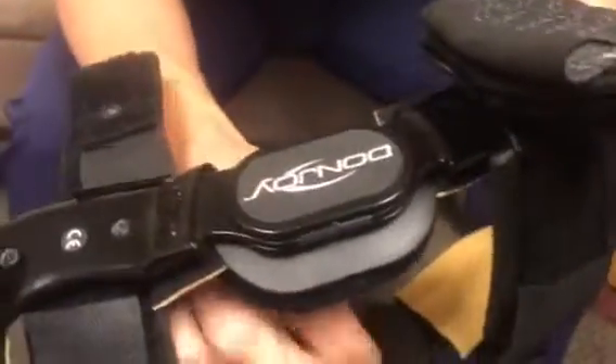Come in here, take a mini Phillips screwdriver, unscrew there, pop that out, pop this extension stop out, and then install a new one. Put the mini Phillips screw back in, and that is your custom DonJoy elbow brace.